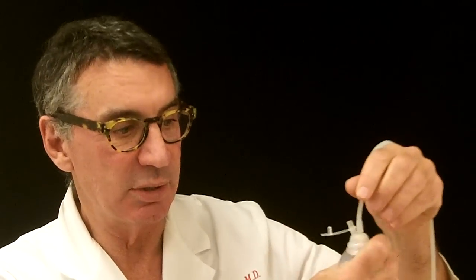When again it looks like that, it is not working. So again, you squeeze this down, you take the tab, and put it in the hole so that this is collapsed.